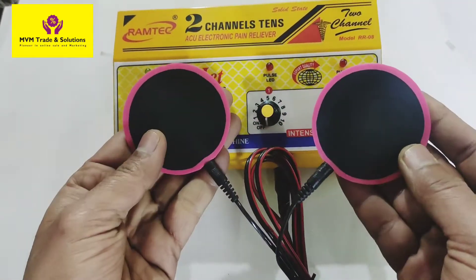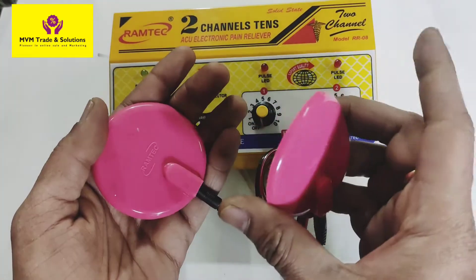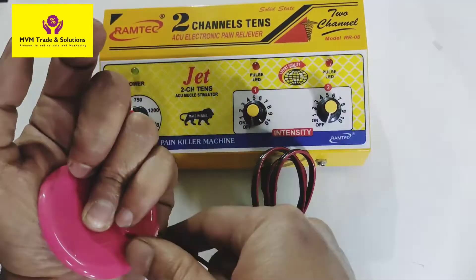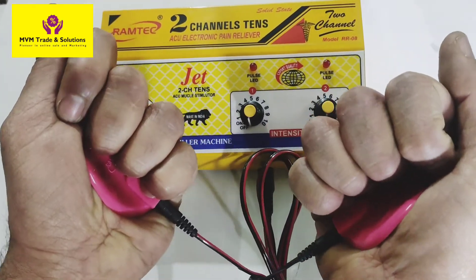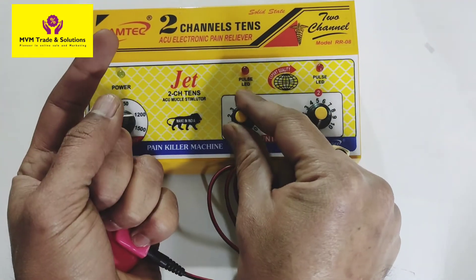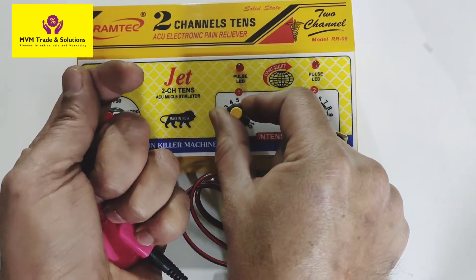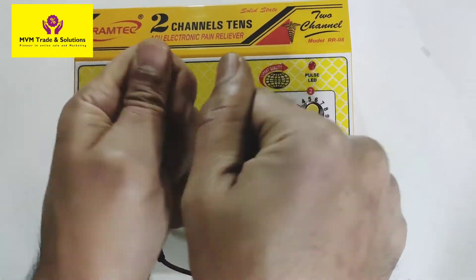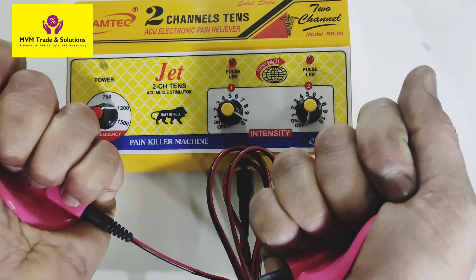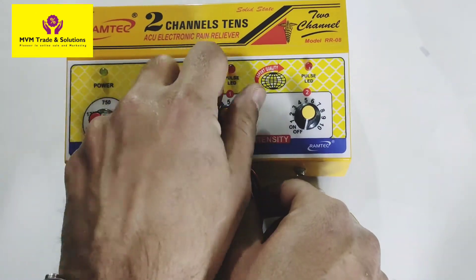Press the power button. Now we need to put gel on the back of the pad. I am not putting gel here for demonstration, but you need to put gel on the back of the pad. One pad is placed on the left and one on the right. I have set the frequency to 1200 and moved the intensity. As I increase the intensity, you can see the vibration — I am trying to stop but cannot stop my hands. The vibration is on the back of the pad — both hands are vibrating on the back of the pad.